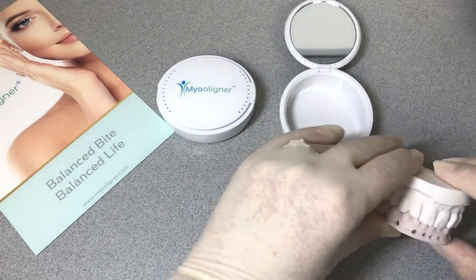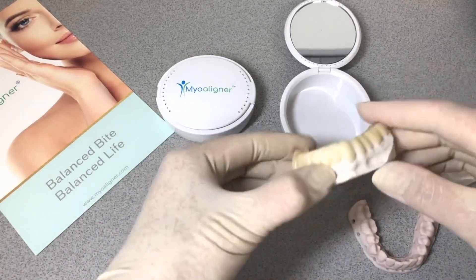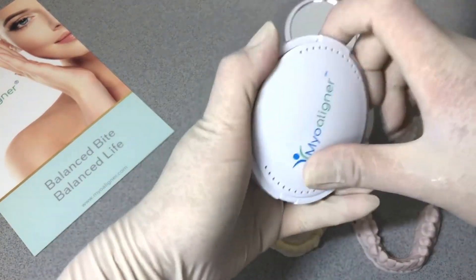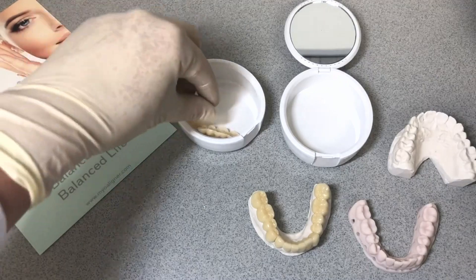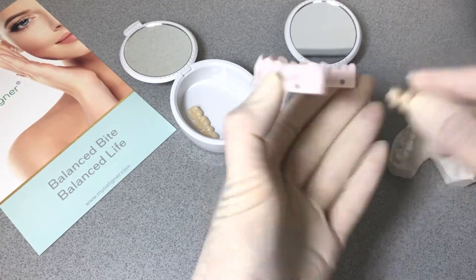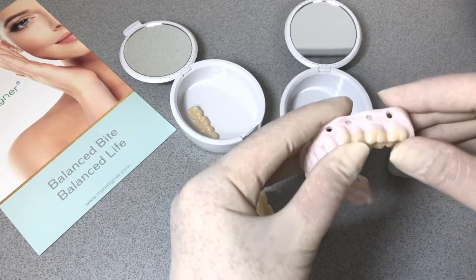The second design is meant to be not removable by the patient, but temporarily bonded to the teeth. That design really helps transition into phase two orthotic therapy, orthodontic or orthotropic procedures.